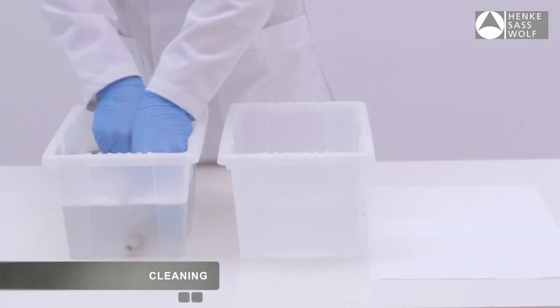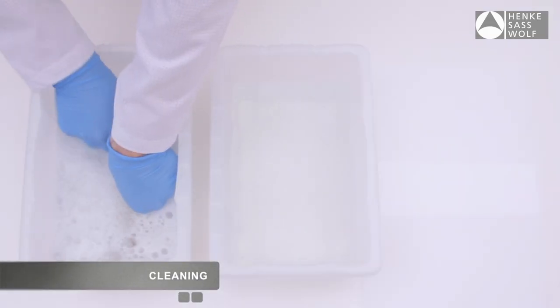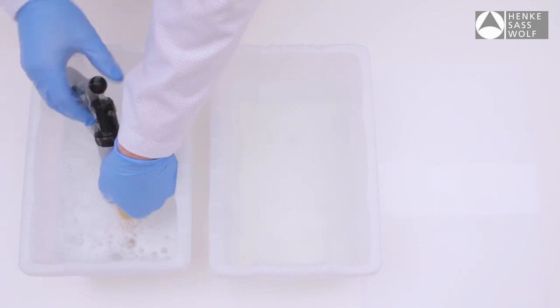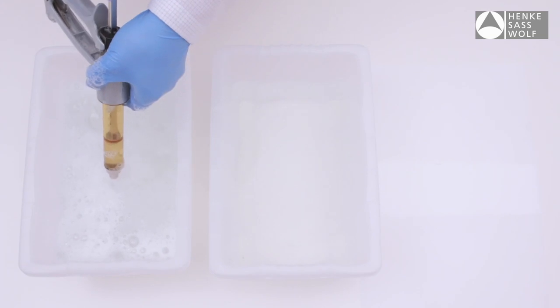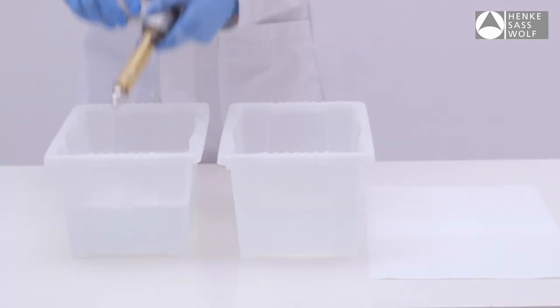Remove all traces of material from syringe by flushing thoroughly with hot water detergent mix.